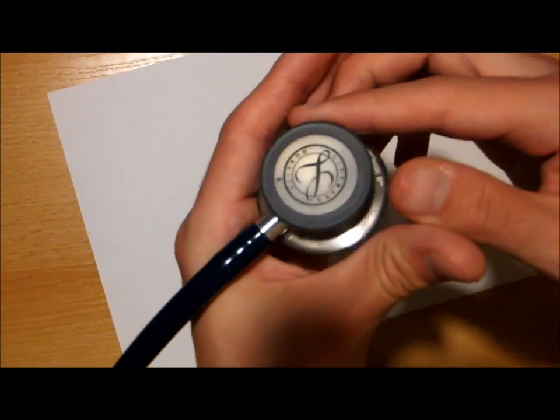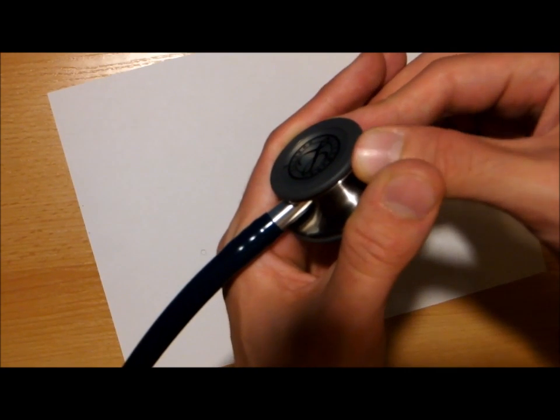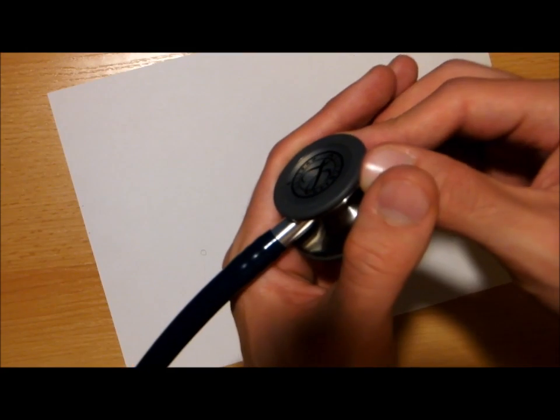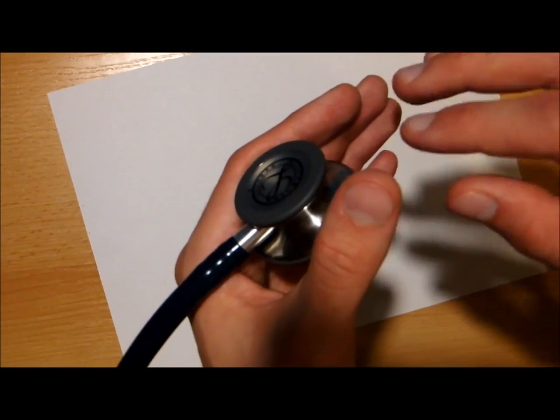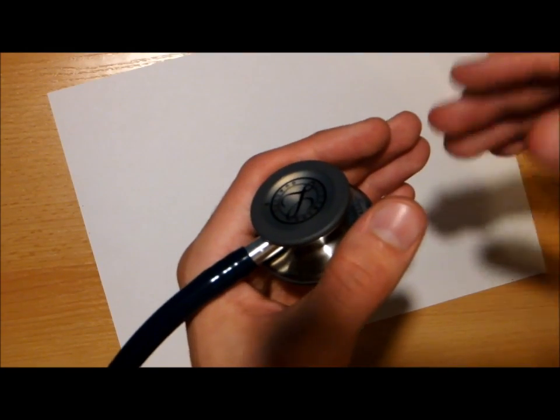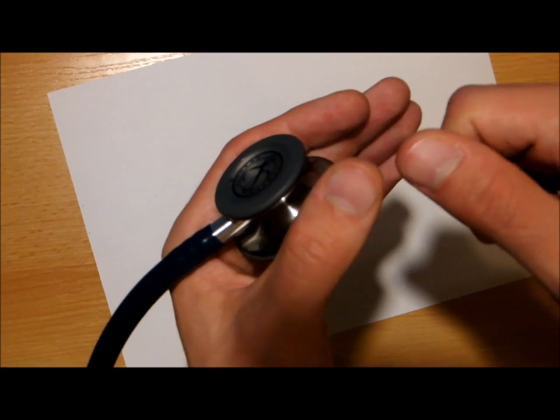Then you use your thumb to kind of push it up, to push the diaphragm up. But now I'm only talking about the way to hold it, it's not that easy either.